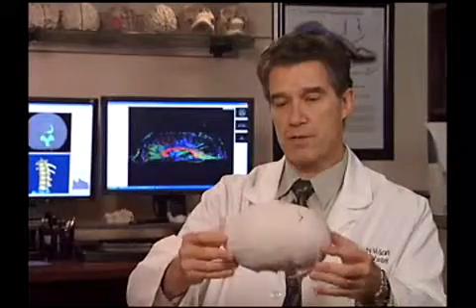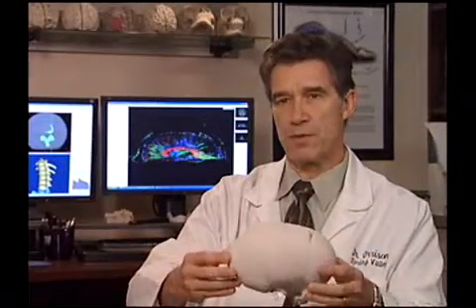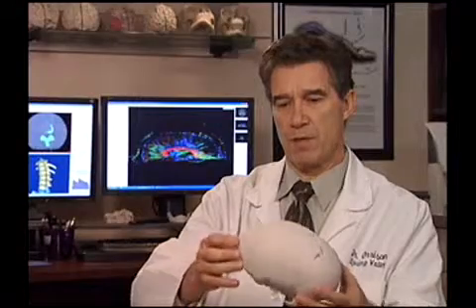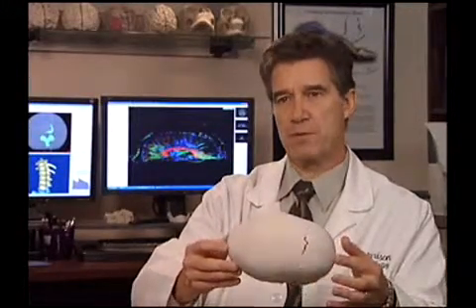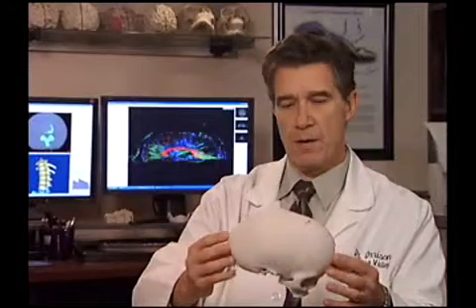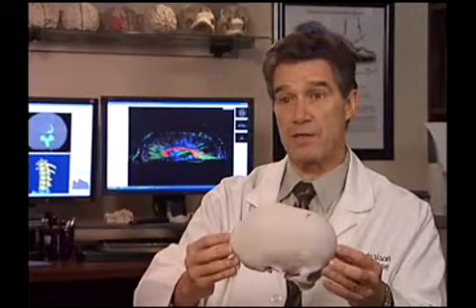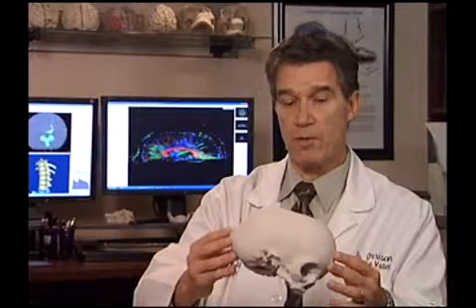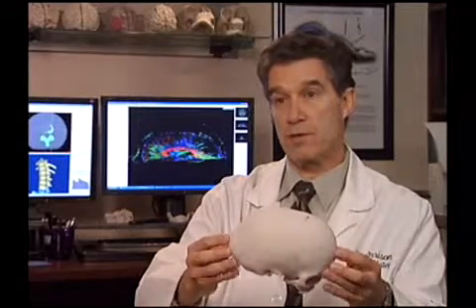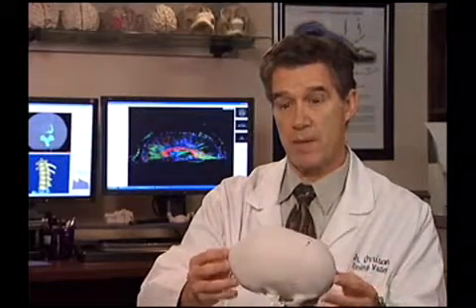This skull model makes the diagnosis of that problem not only much easier, but very absolute. It also gives the neurosurgeon an advantage to have this when they plan their surgery and when they explain to the parents what's wrong with the child.